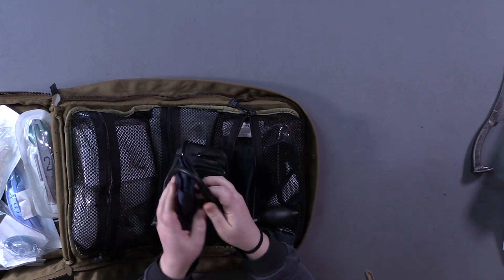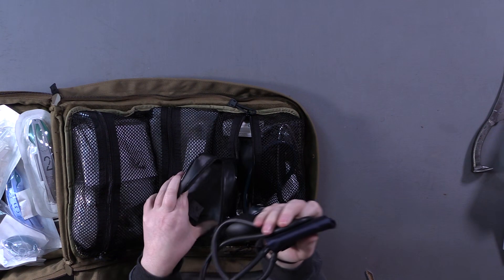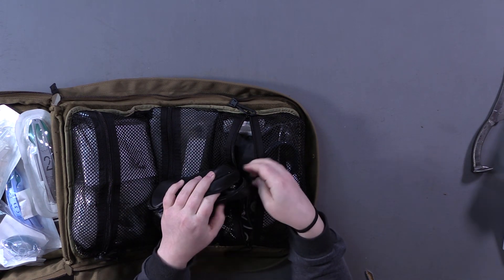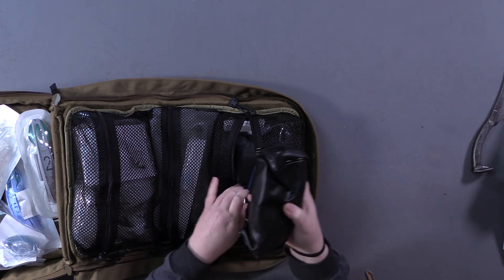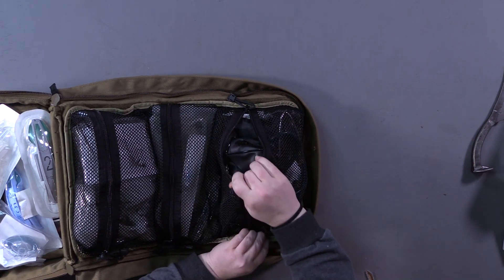You have to make sure you get a pediatric blood pressure cuff — these are tiny so you can use them on kids. For older kids you can use them on the wrist or forearm just like an adult blood pressure cuff, but adult cuffs don't get small enough to check a child's blood pressure. I like manual blood pressure cuffs because the automatic ones aren't always accurate. When I do an automatic blood pressure check I always verify it against the pulse ox to make sure the heart rate matches on both — that's the trick to know whether it's accurate.